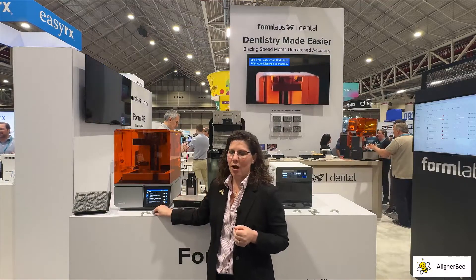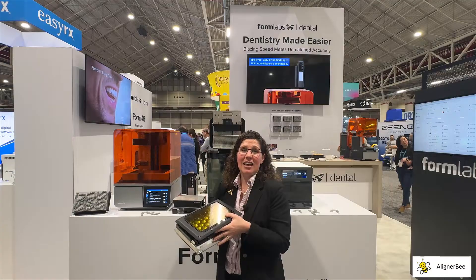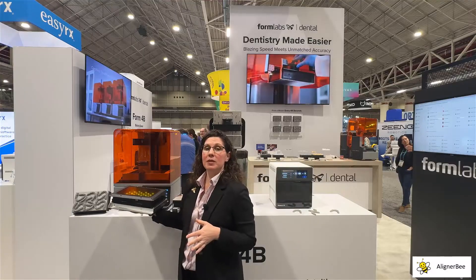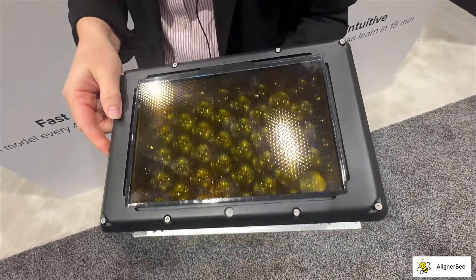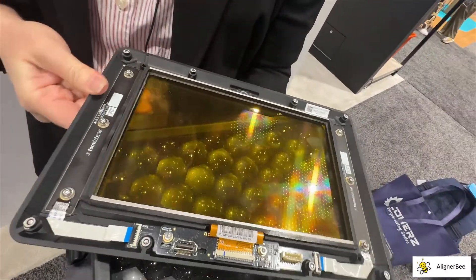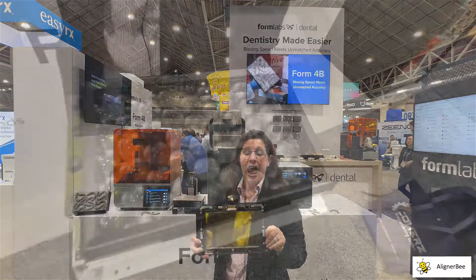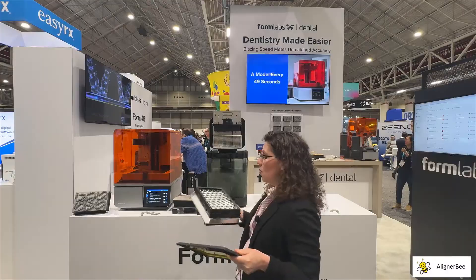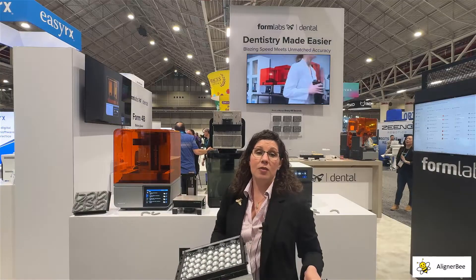Let's take a look at how this works with the optics. Formlabs has designed a new optical display unit. As we can see here, we can see our optical system that would be sitting in the 3D printer. When we remove the upper glass, we're able to see elements in the glass system that are in contact with our build platform. This has a heating element internally and can be replaced if damaged by resin. We can also see the new innovative light system designed for use with the mask SLA process.